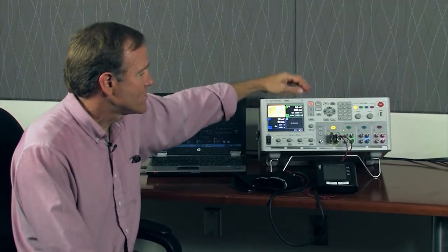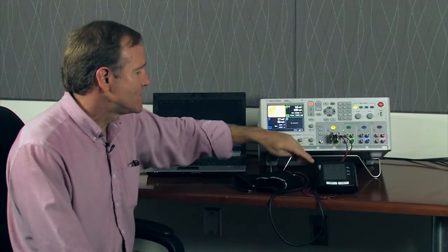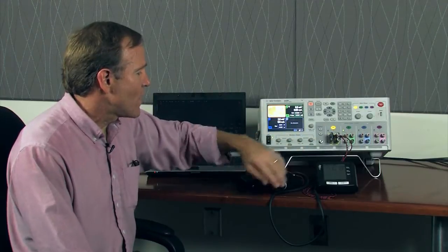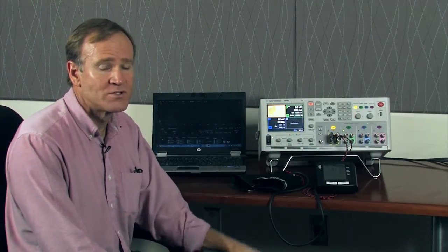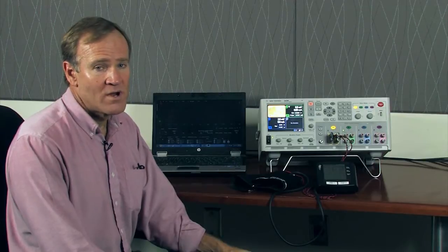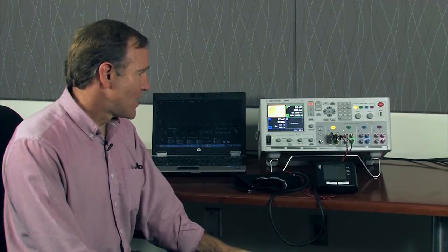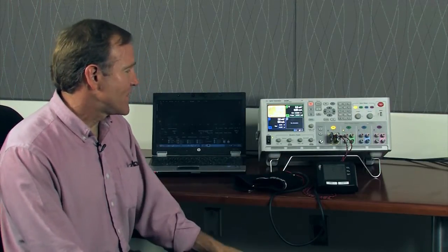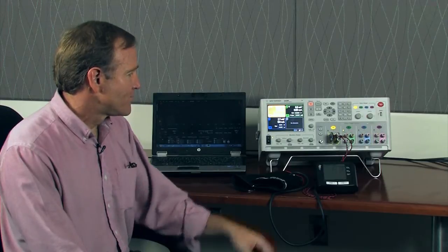We're only using one of those and we have it connected to a wireless blood pressure monitor. This is actually the world's first Wi-Fi wireless blood pressure monitor. We'll be using this as our medical device for our experiment today.